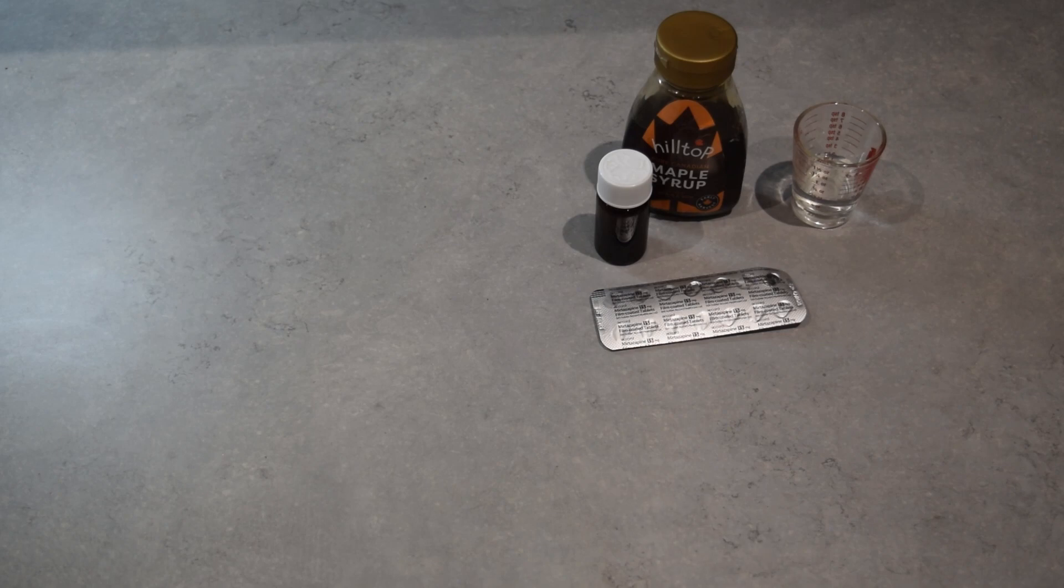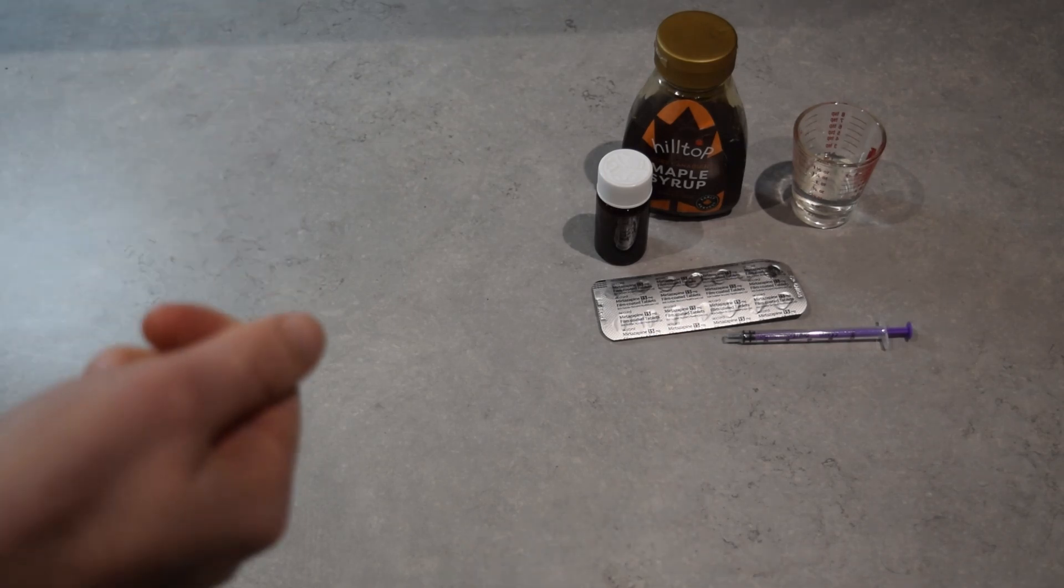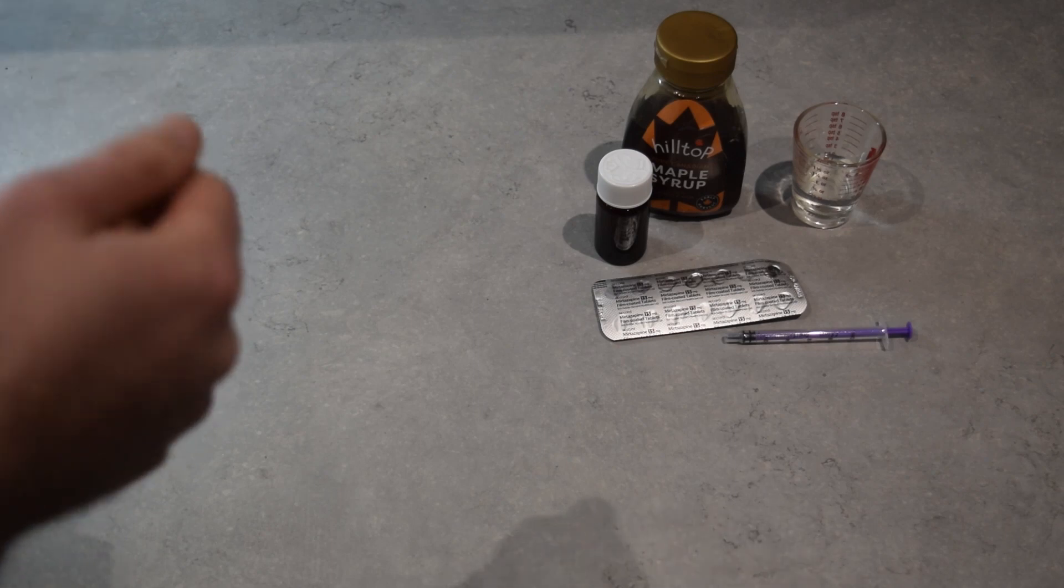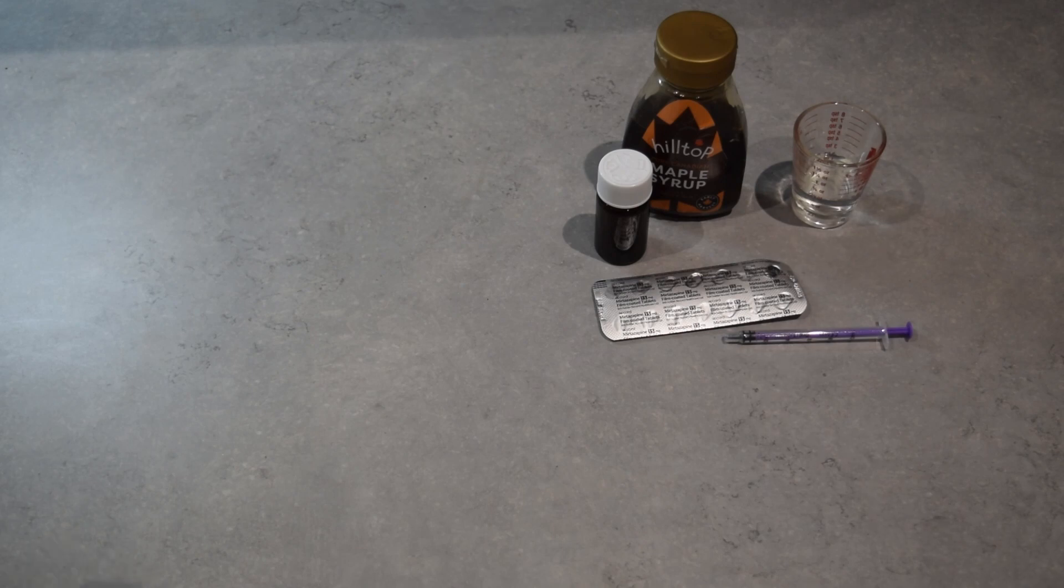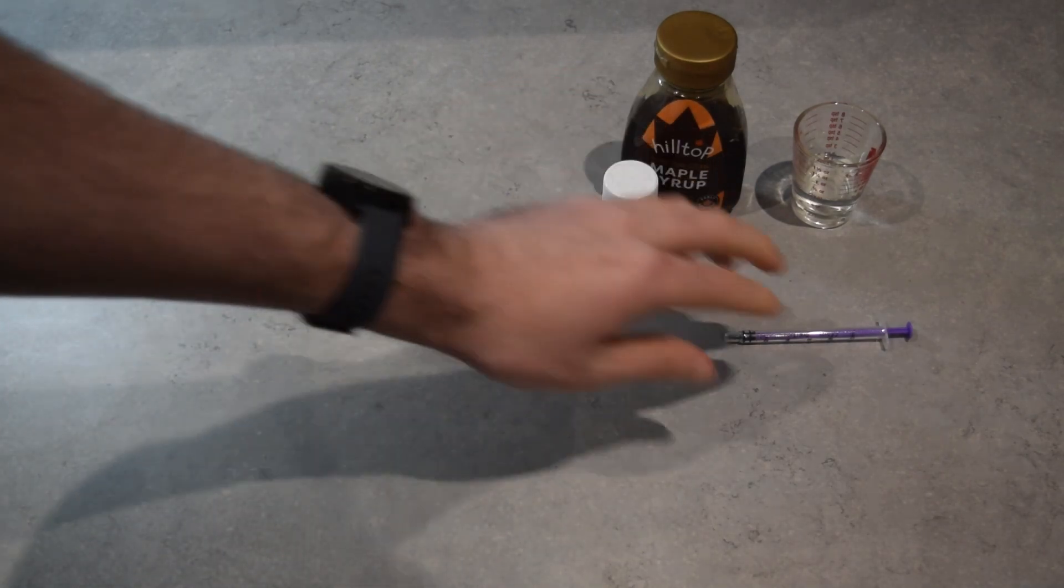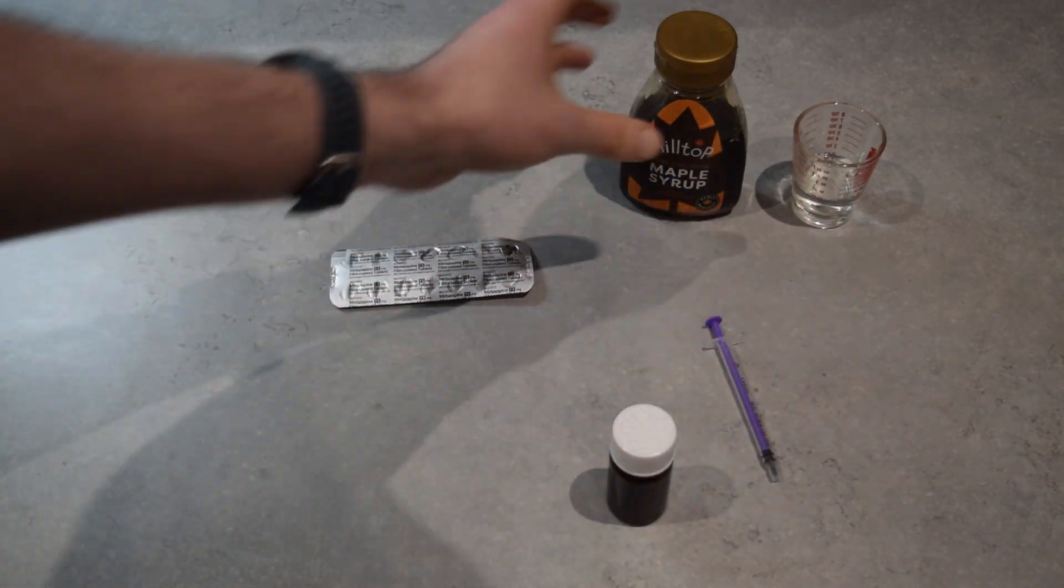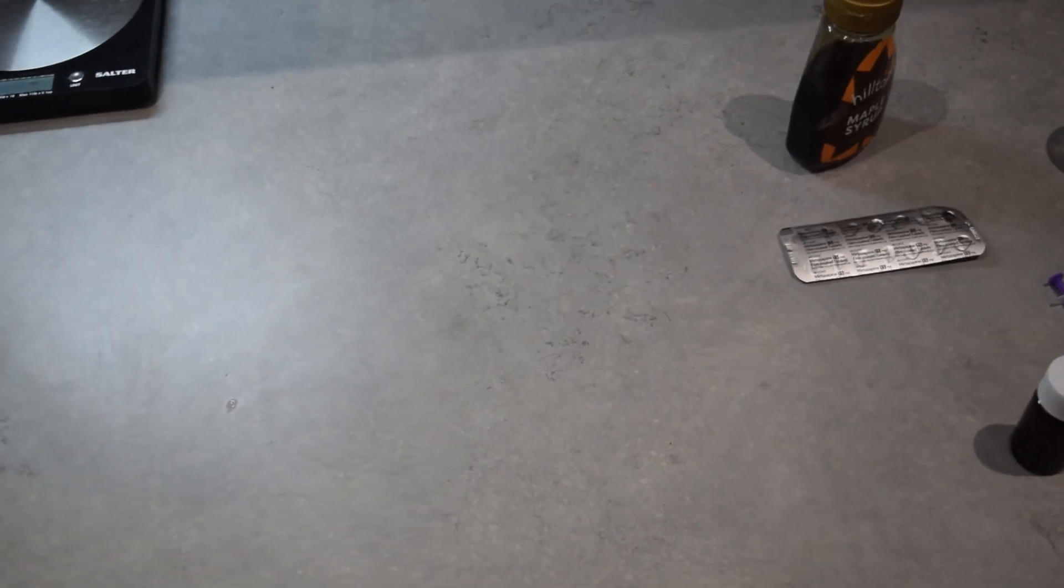So you'll also need an oral syringe. That's our oral syringe. Now the solution, the suspension that I'm going to make here will be 20 milliliters of total fluid with one 15 milligrams of mirtazapine.